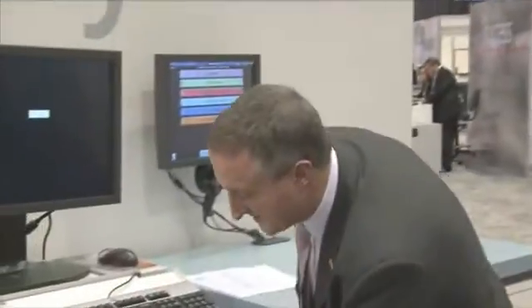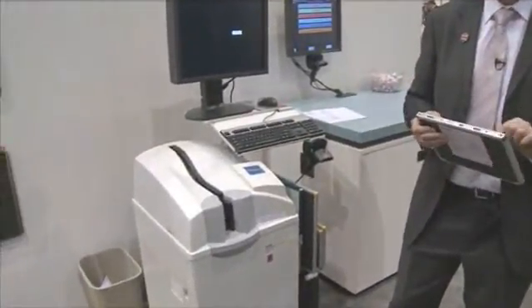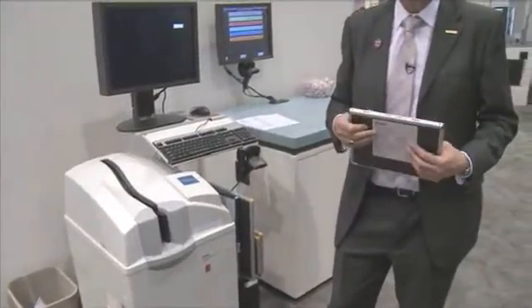There are no artefacts therefore on the image that you see. The other benefit of our CR system is that we use the same hardware for both general radiography and for mammography imaging. The difference for mammography is that you require a higher resolution scanning in order to visualise the micro-calcifications on the images. When you introduce the CR mammo cassette, you immediately convert the CR reader into a higher scanning resolution. Each pixel is 50 microns in size, which is different from a general radiography cassette which is 100 microns in size.